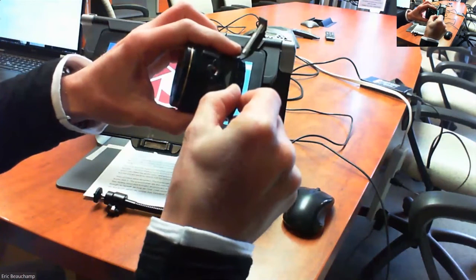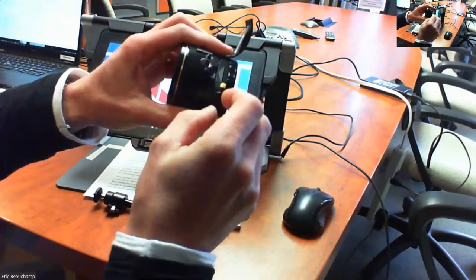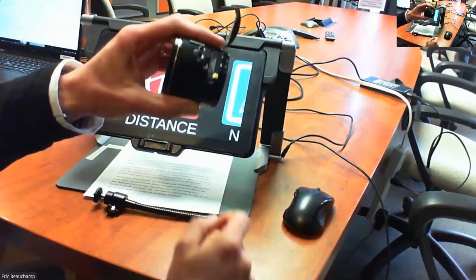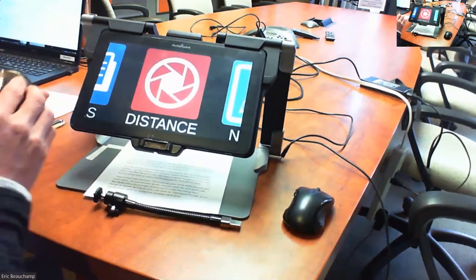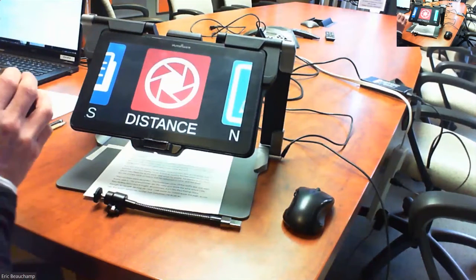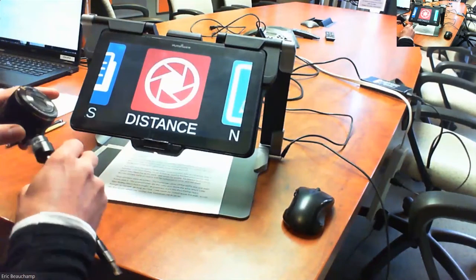Sometimes that lever is not fully in, or the battery is not fully pushed in, and it stops working. So just push the battery in perfectly, and that should solve the problem. So these are little things that could happen to you, and sometimes teachers get nervous when things like this happen. Do not get nervous. There's a solution to everything.